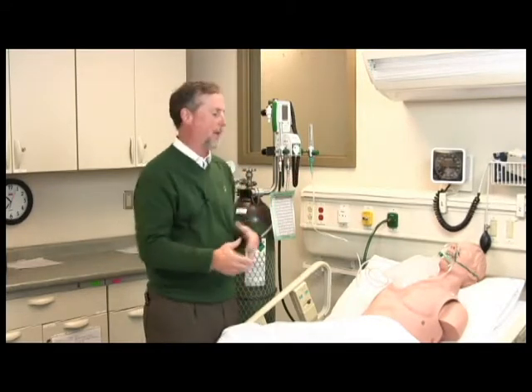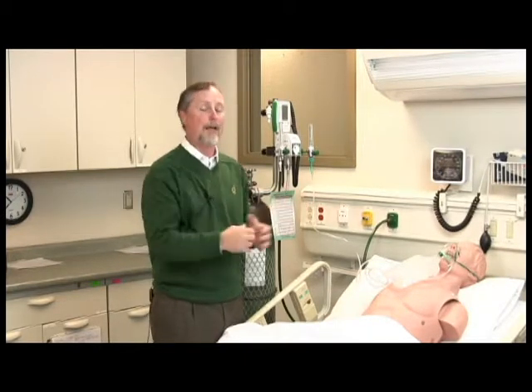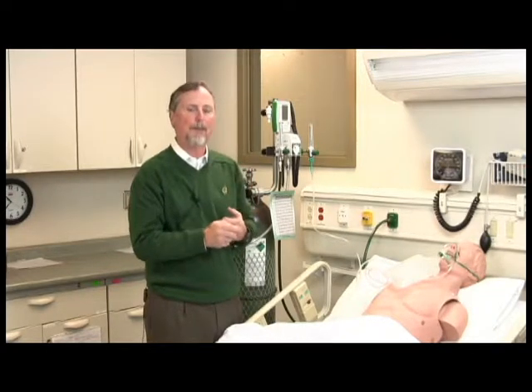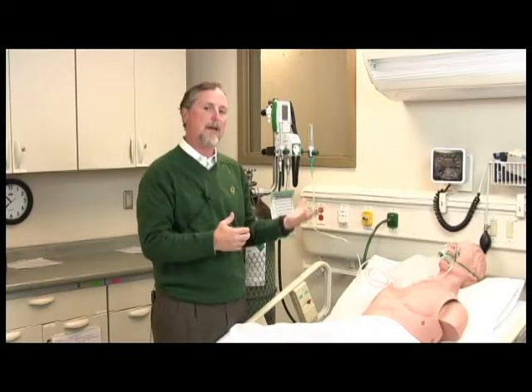Of course, we're going to monitor our patient, check their pulse oximetry, and then look and see if signs and symptoms of respiratory distress go away. Again, its primary indication is to overcome airway obstruction. So there's evidence out there for COPD, for asthma, for bronchiolitis in children, maybe RSV, those type of disease processes, croup, upper airway stridor, aspiration of foreign body. Those are the type of things that cause an obstruction in the airway, that cause a narrowing, and it causes difficulty of gas passing through the respiratory system. So those are the type of cases where you'd want to consider Heliox therapy.